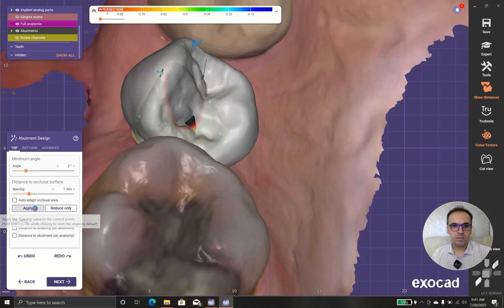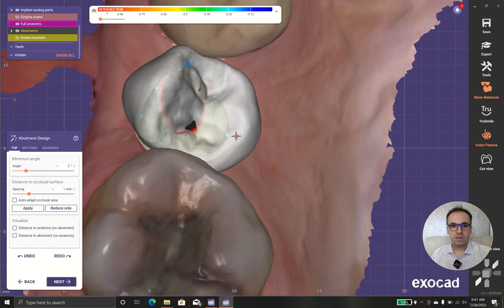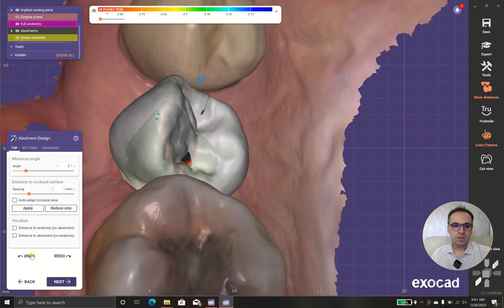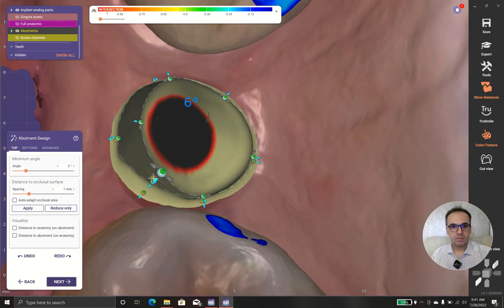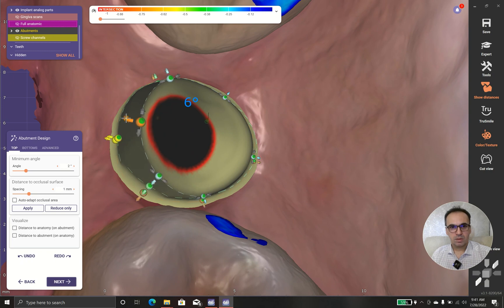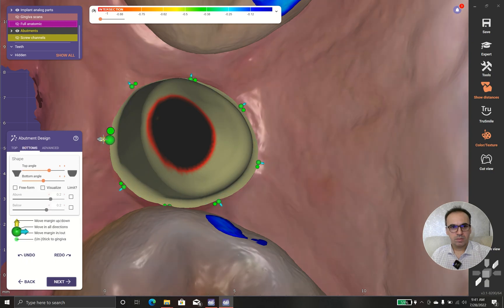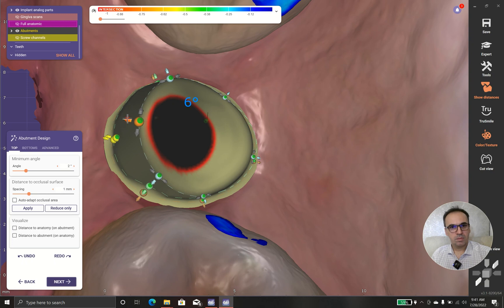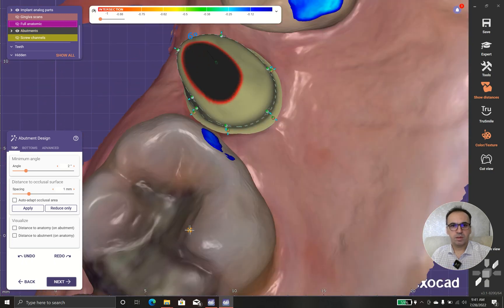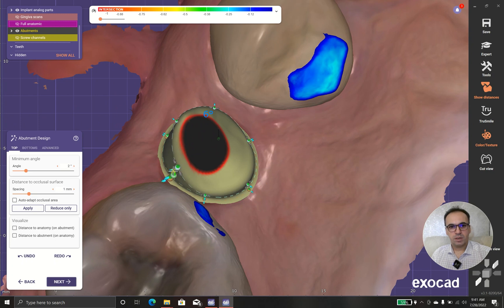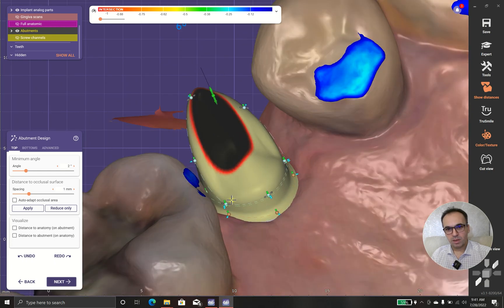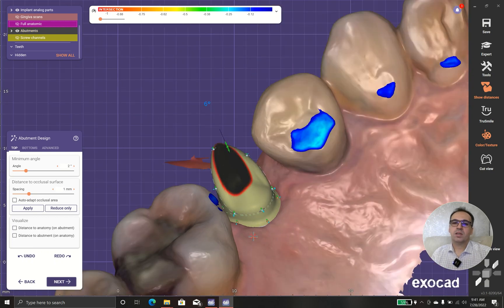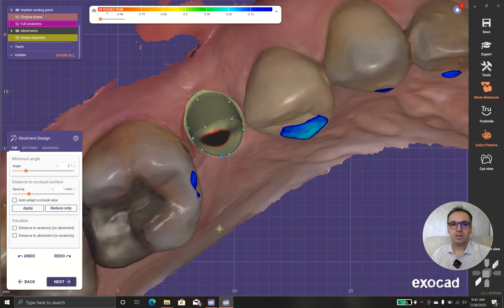Here we have a problem — there is a problem. I think it's not going to be fixed; maybe we should fix it after we finalize the restoration. It looks better. I prefer to have enough metal around the screw hole. This small piece also helps to retain our crown and cement properly.